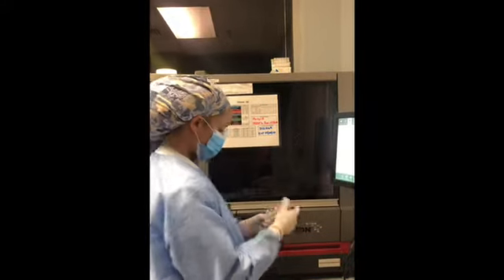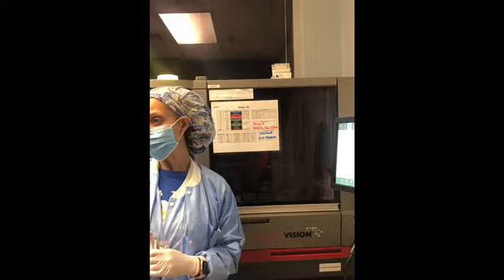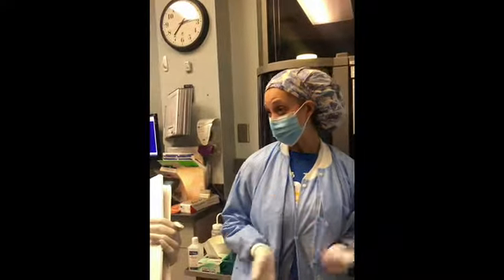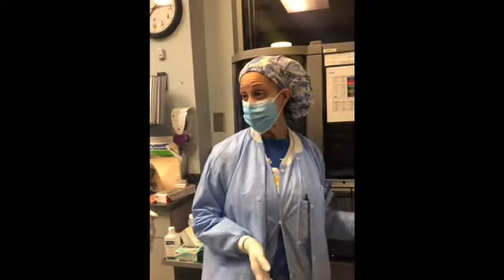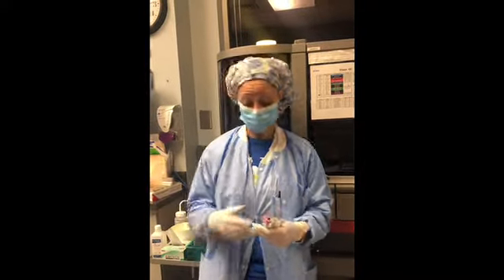First things first. So what you would do is you would receive your samples in as normal. Okay. Have them spun down. Now it's up to you on how you want to do your history check. You can either put them on here first. You can do your history check before you put them on. It's up to you on how you want to do it. Okay.